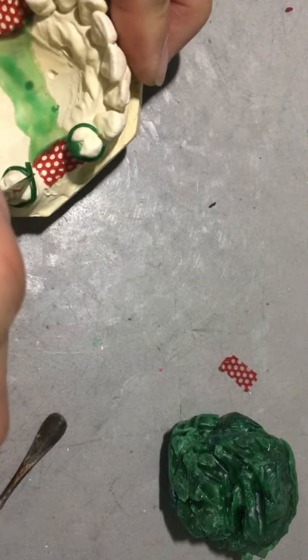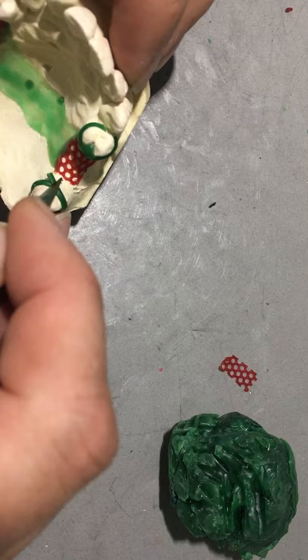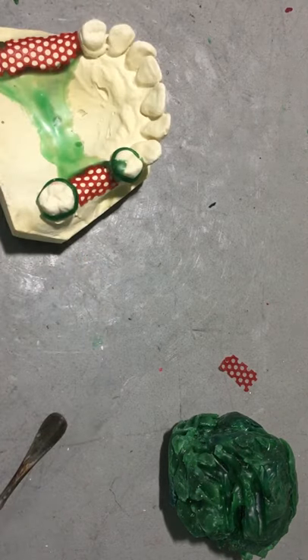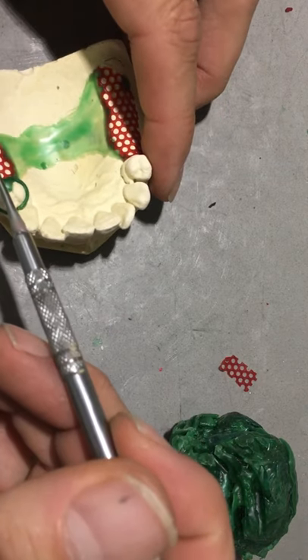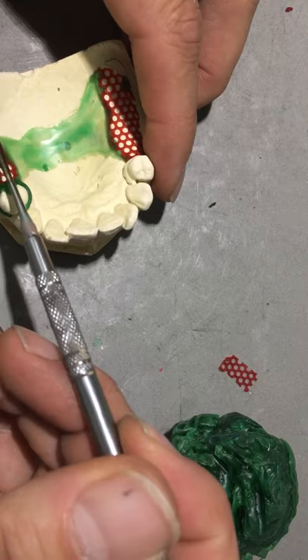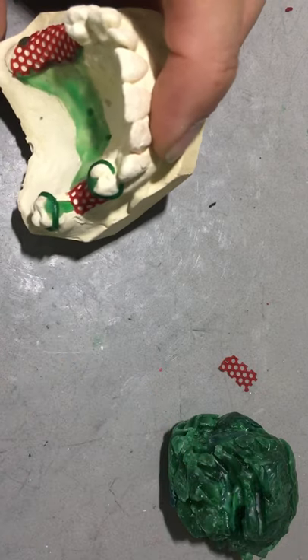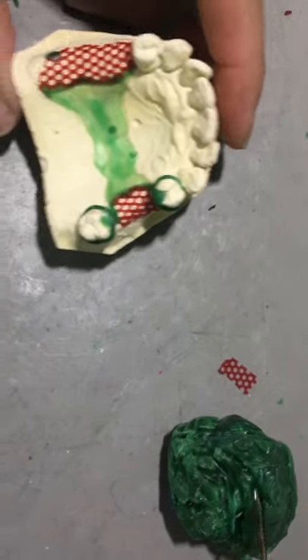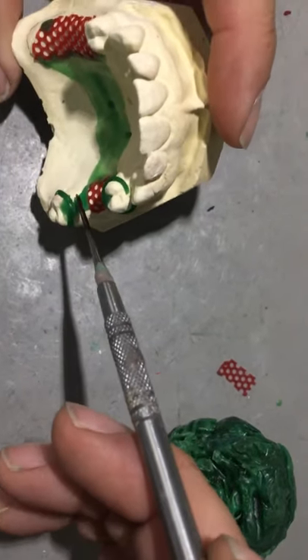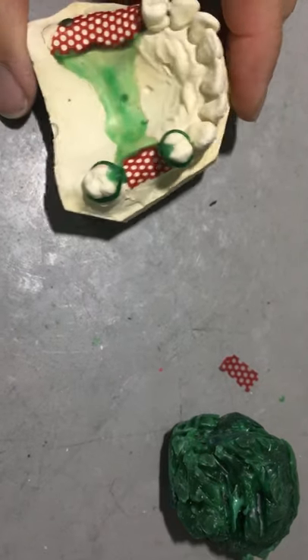So my goal for everyone today is to get to this stage by the end of the day - have this ready to be sprued and invested. Then possibly we could run a casting cycle in Friday's class. I don't think that would be too taxing to do so, providing it is already in its investment ring and sprued and ready to go. That's all we'll be doing on Friday - we won't be waxing or have any time to complete the wax up. So that would be today's task.